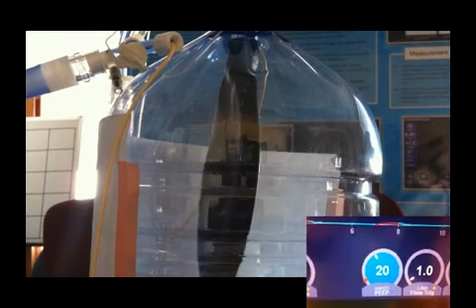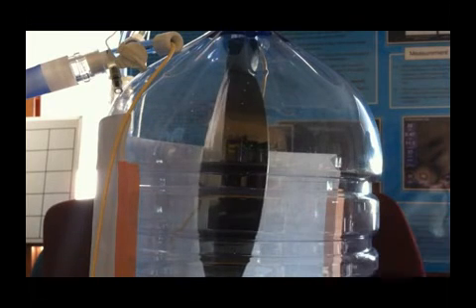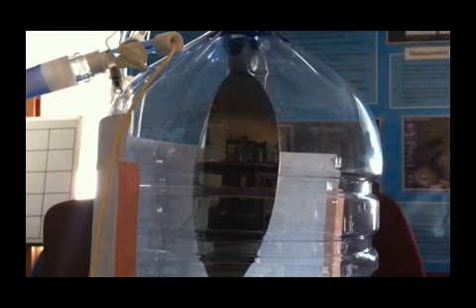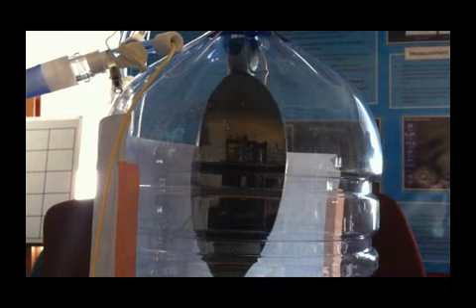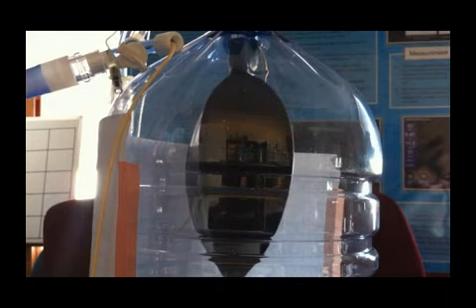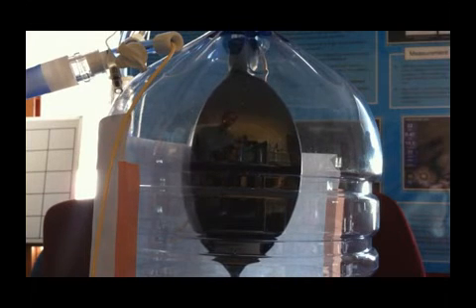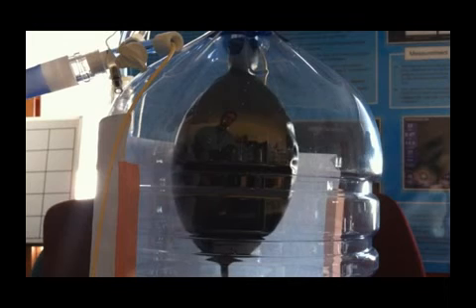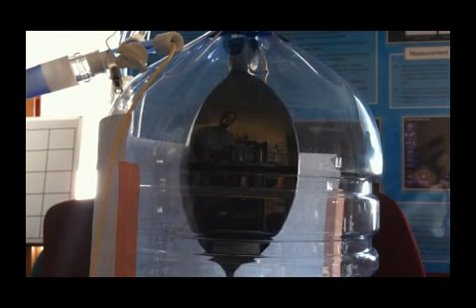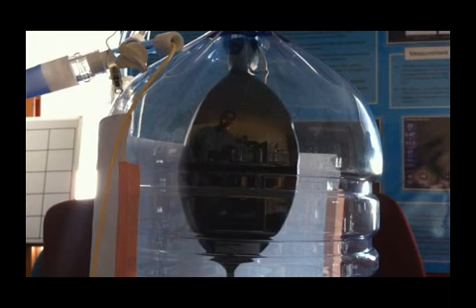I will now increase the PEEP to 20 cm of water. If you recall the look of the test lung at all other PEEP levels, you will notice whether the PEEP was 6, 12, or now 20, the PEEP level doesn't seem to make much difference in terms of how the lung looks, so long as it equals the pressure outside of the lung, giving you a transpulmonary pressure of 0.